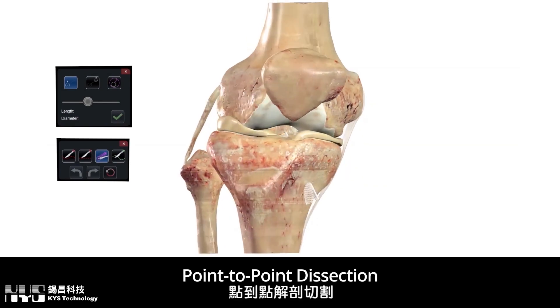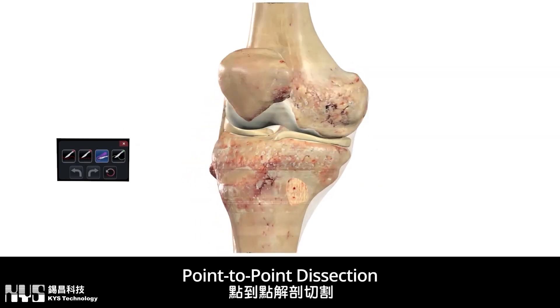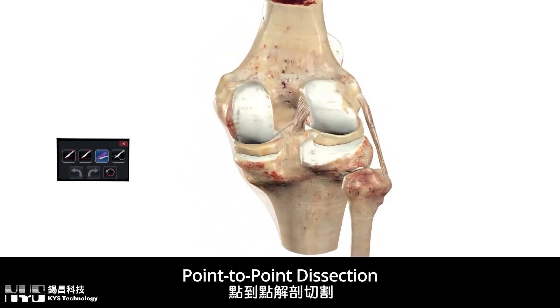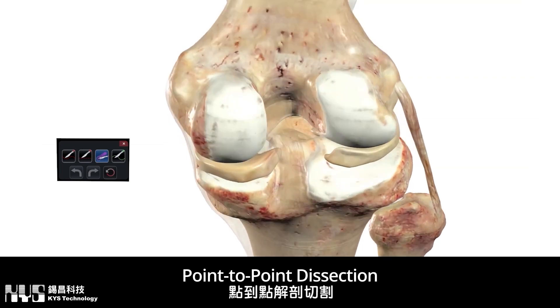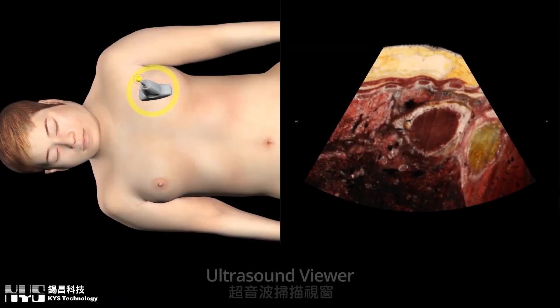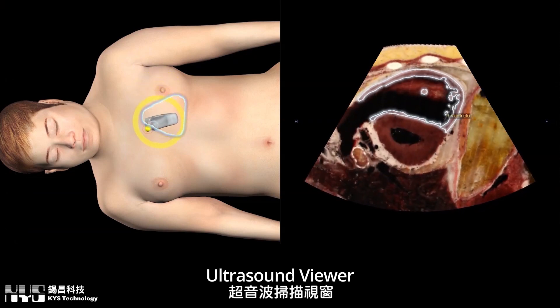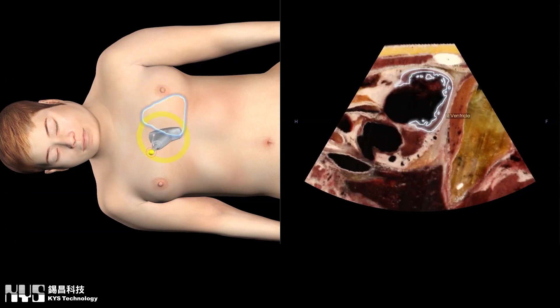Table 10 also elevates clinical training and care. From practicing customized surgical procedures and adapting to the unique anatomical variations of individual patients, to inspecting how the angle and rotation of an ultrasound probe may affect the field of view of internal anatomy.